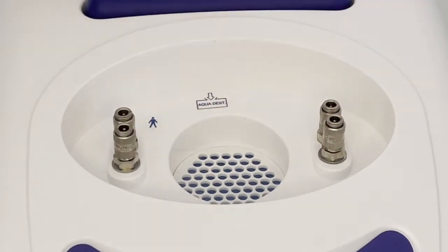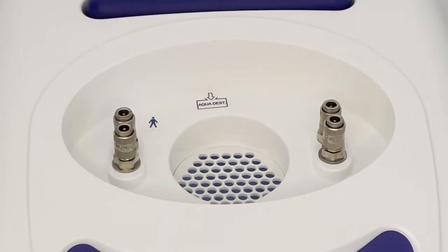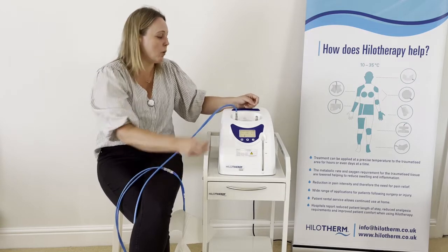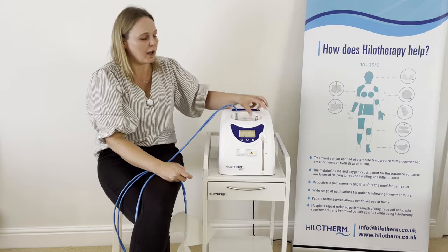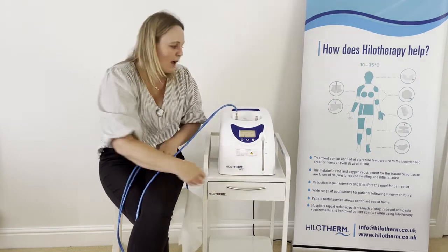To make a connector safe, just press down on the outer metal collar and check that those are down and safe — not up like a fountain, but down and safe. That's one main thing to look out for.